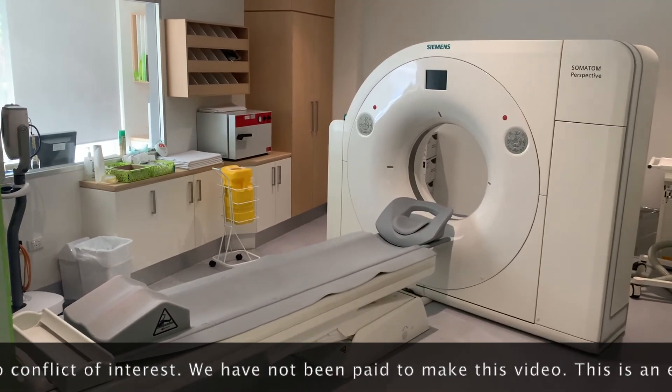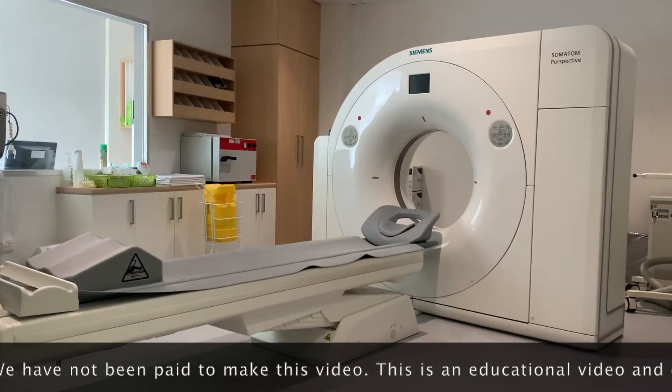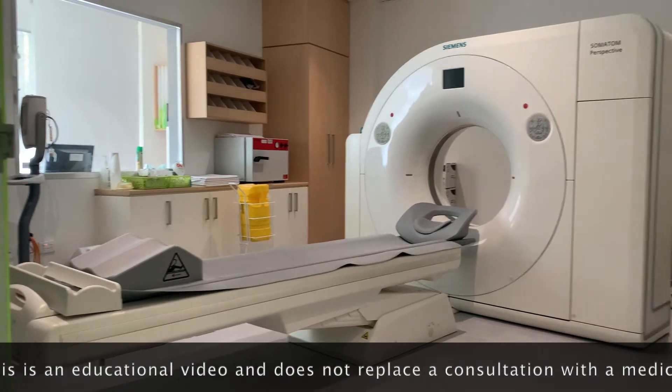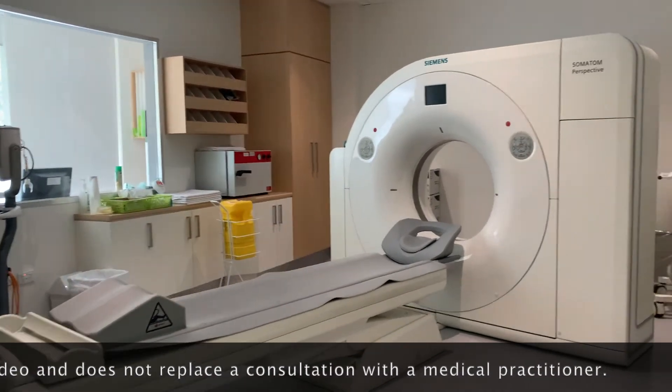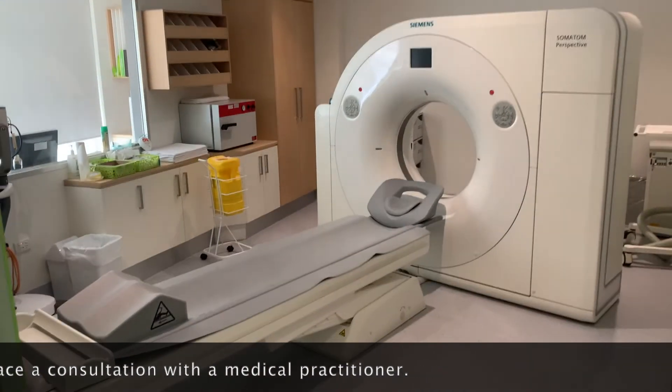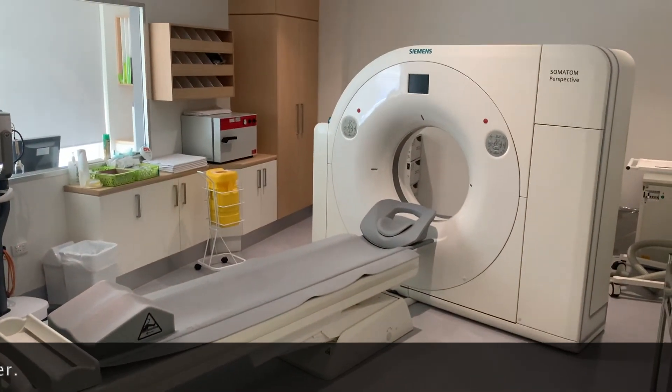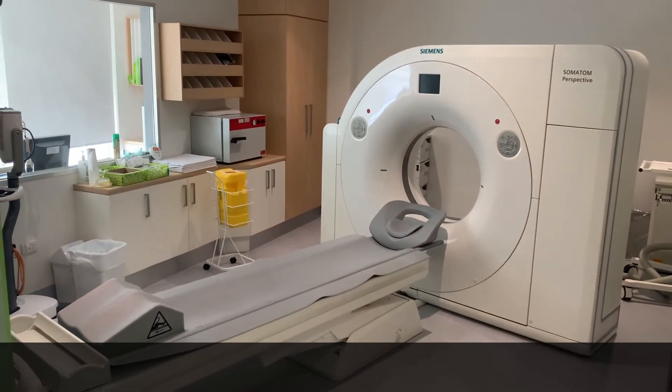This is what a typical CT scanner looks like. Most scans are done within minutes, involve a small amount of ionizing radiation, and are done as fast outpatient procedures.